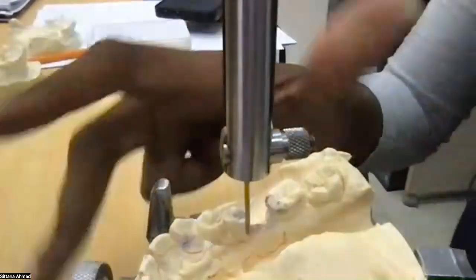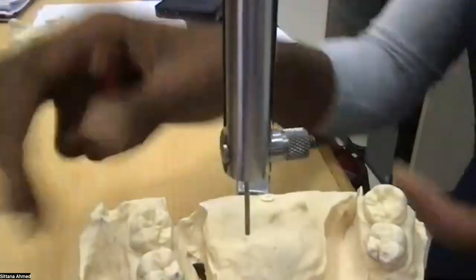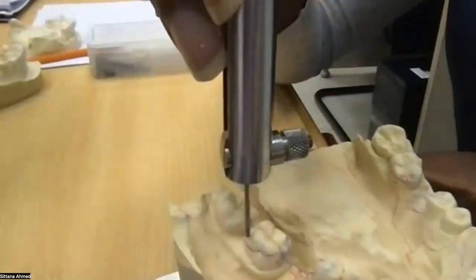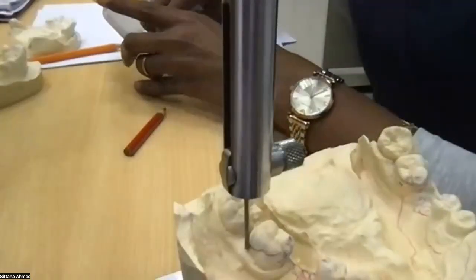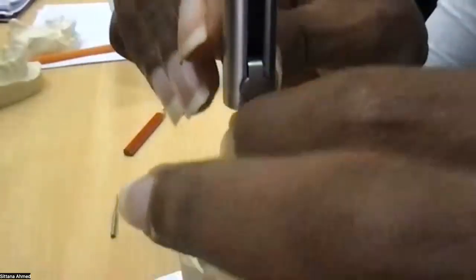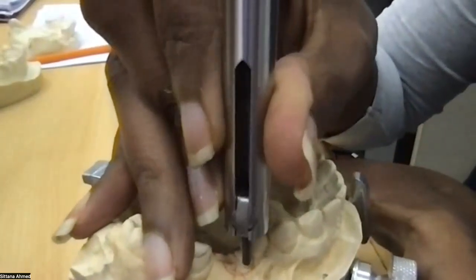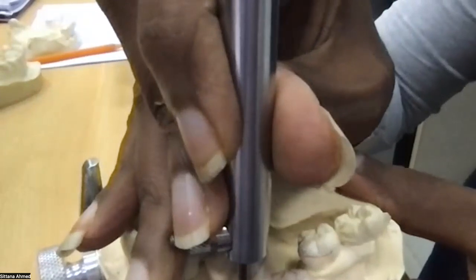I will not make any anterior posterior change. Then I will lift the cast or move it, rotate it to look proximally on the sides. In this case, I'm going to start to do my drawing because it's much easier to see. So I am going to draw here a black line.